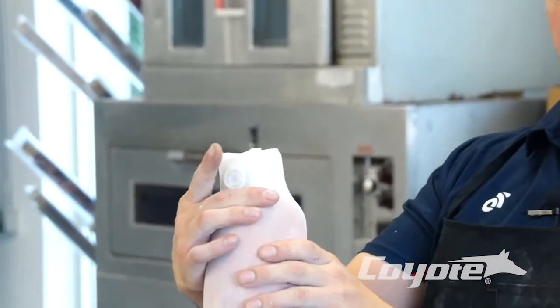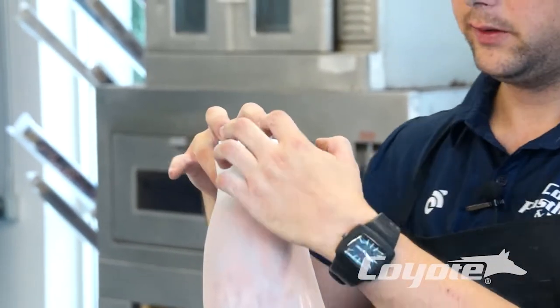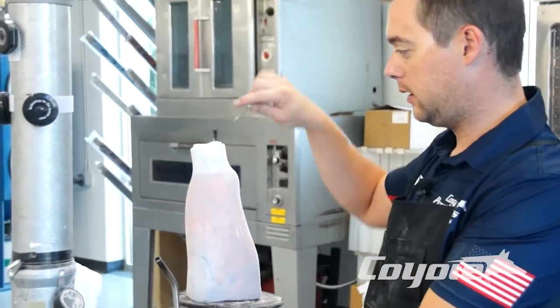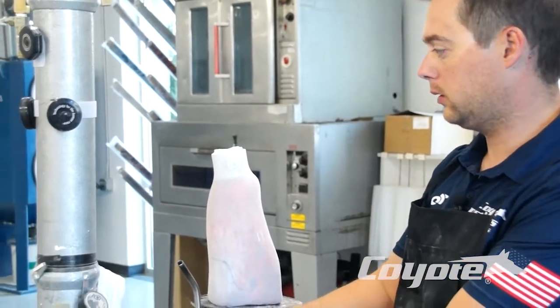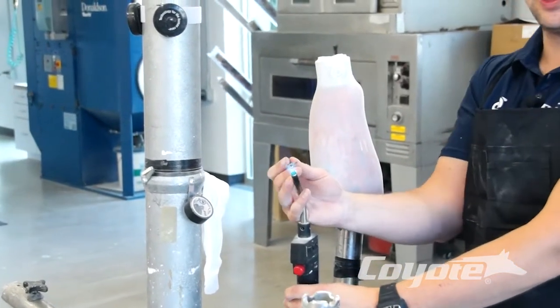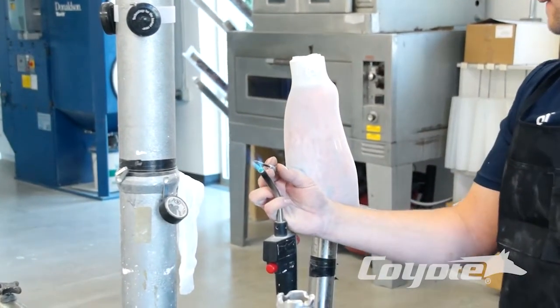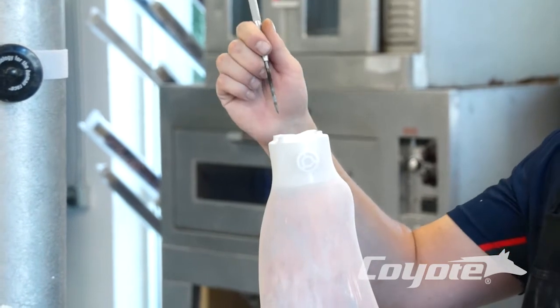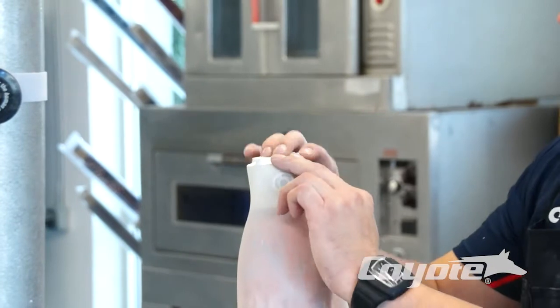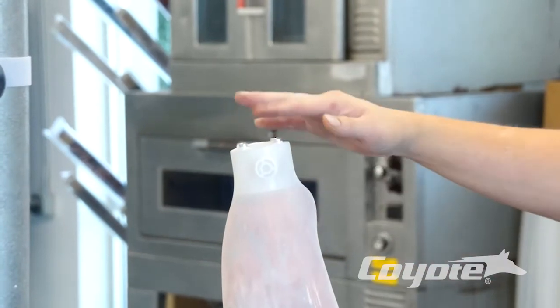Now you'll see we've got our nylons over here. We want to expose our four holes here — you can either cut those, or take a hot awl and burn the holes through your four-hole adapter at the distal end. Go ahead and heat your awl up and expose these four holes on our dummy: one, two, three, four. Just to get those exposed, we do have our four foam dots that we're going to put on here before we pull our plastic.